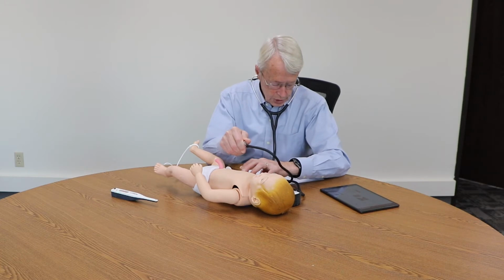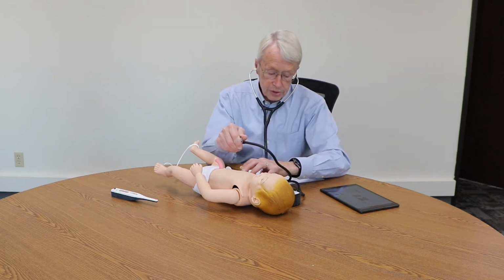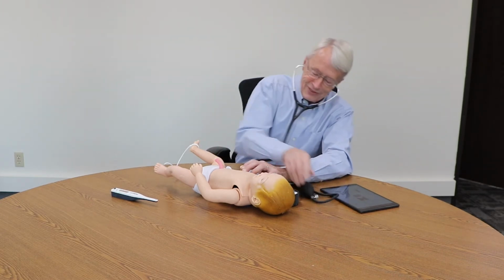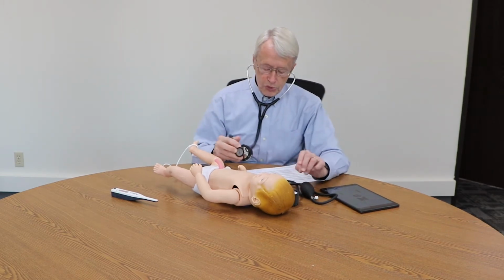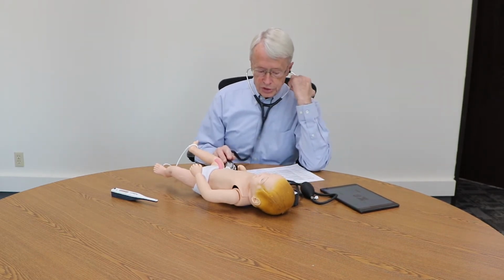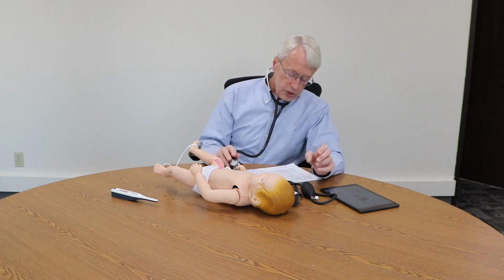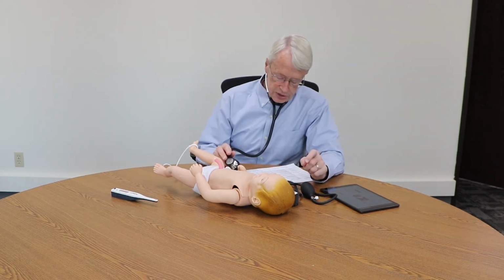And in this situation, it's working beautifully, and it's 80/55. So we were able to tell what the blood pressure was in that situation, and our baby is not in trouble with that. The pressure is up a little bit, but as anticipated.